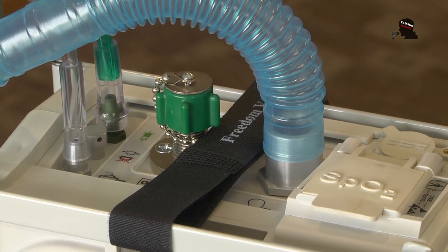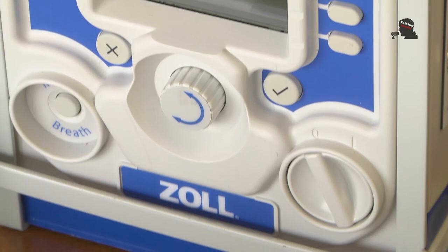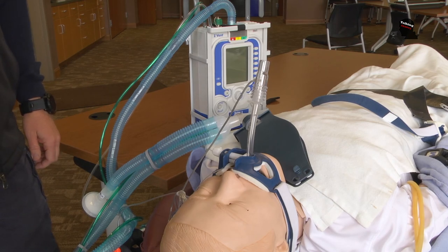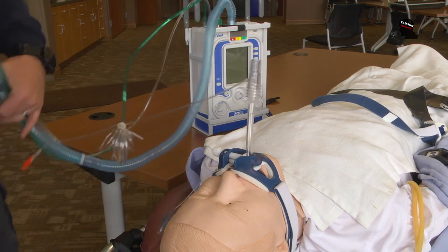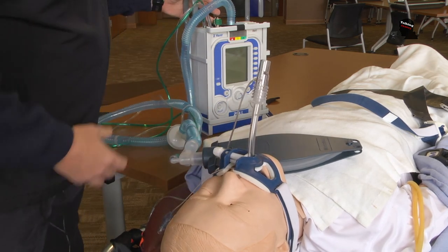The reason we looked at ventilators is for a couple of reasons. First, it obviously provides better patient care — for patients in respiratory distress we can do BiPAP and CPAP, and for patients in cardiac arrest or overdose we can provide better care when breathing for them. We also know there was concern about ventilator shortages at the onset of the pandemic. The crews have all gone through extensive training and we do vent training almost every month. We've deployed the vent four times in the last 30 days, and we know it has provided better patient care with all the intricacies involved in running a cardiac arrest.